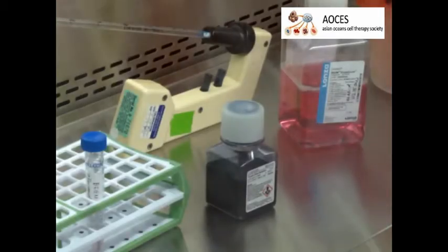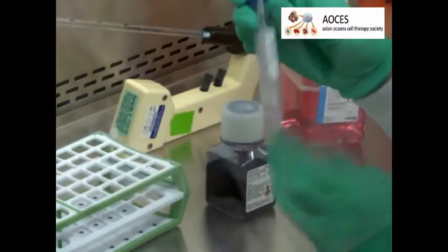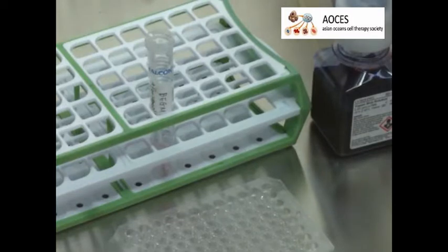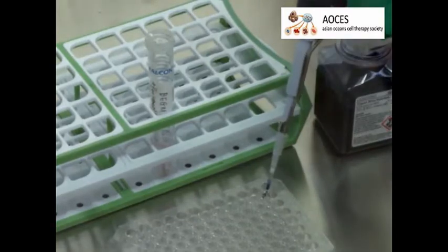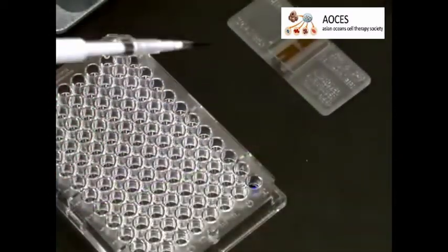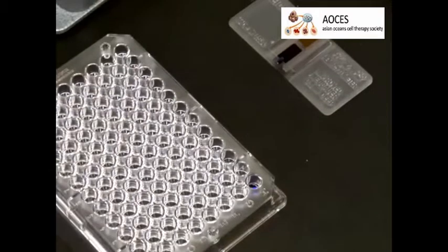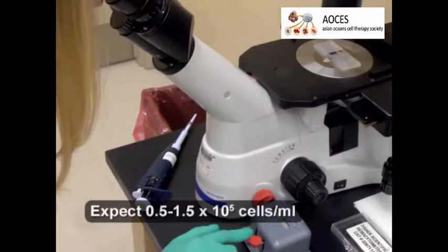Once in the laboratory, gently agitate the brush in the BEGM. Next, remove 10 microliters of the sample, and to this, add 10 microliters of a live dead cell stain. Proceed to introduce this mixture onto a hemocytometer and count only the live cells under a microscope.